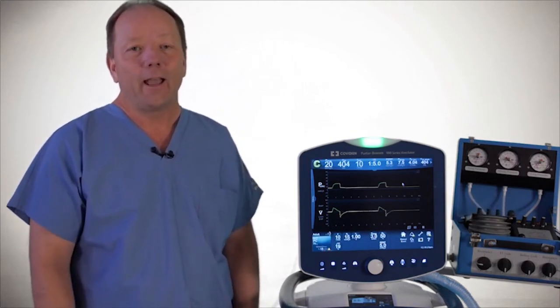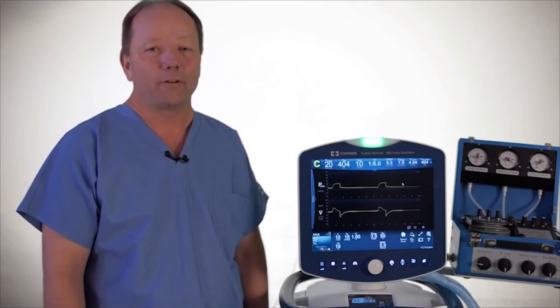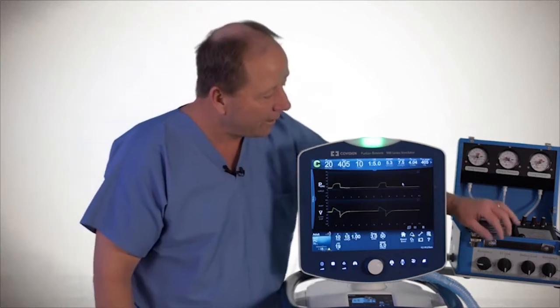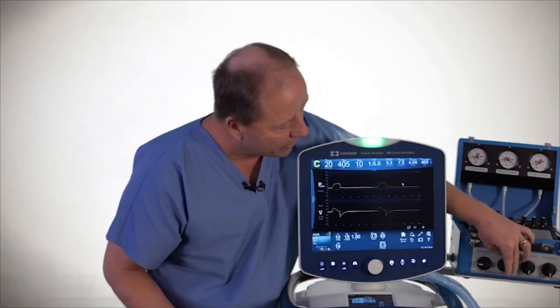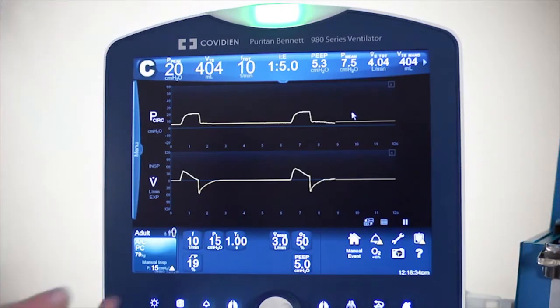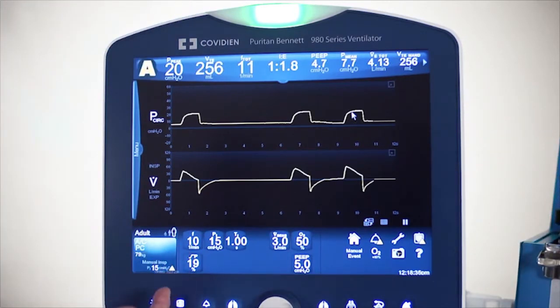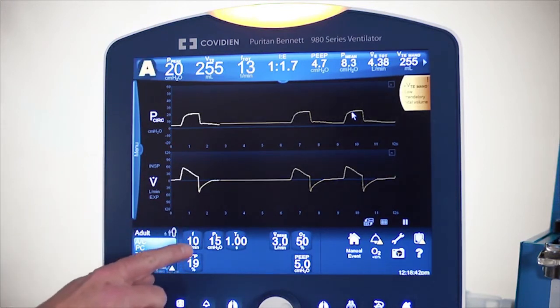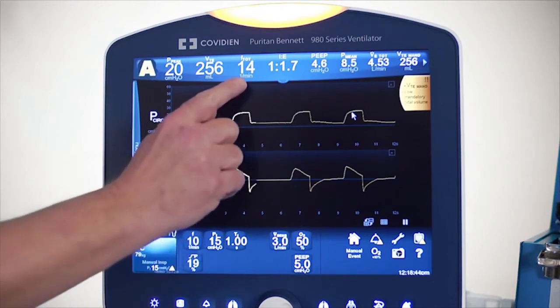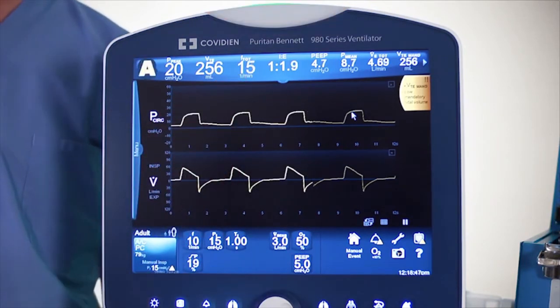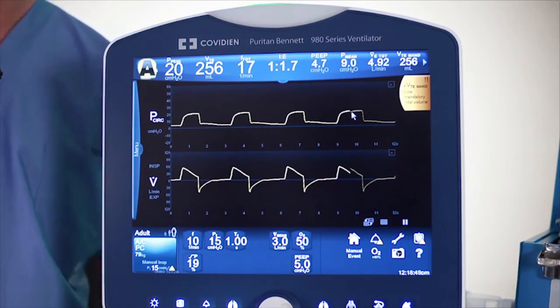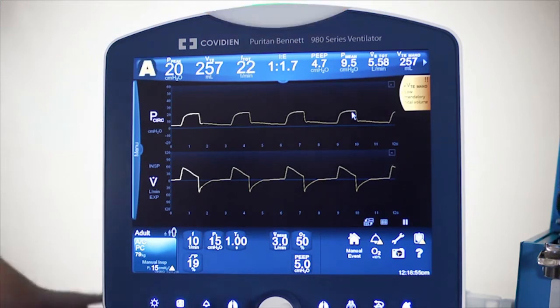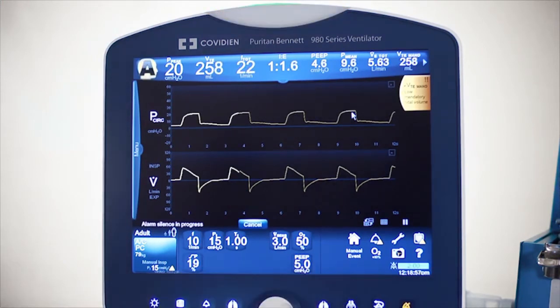Let's simulate a leak to see what is really occurring and how well the LeakSync software interfaces with those situations. I'm going to create a leak first. Right now I'm in simple pressure control ventilation, with assist control pressure-based, a rate of 10. I'm getting some alarms going off. My set rate is 10, but the total rate is beginning to climb — I'm up to 17, then 19 breaths per minute — because of the auto-triggering occurring from the leaks from my test lung.